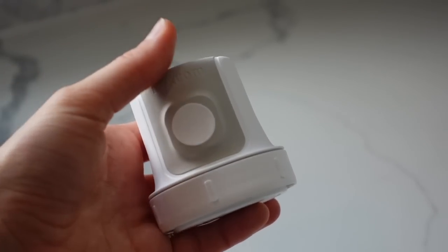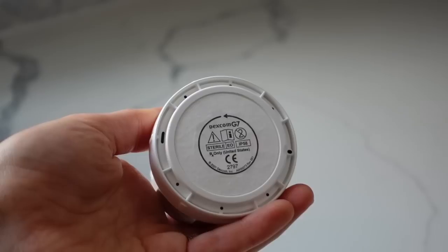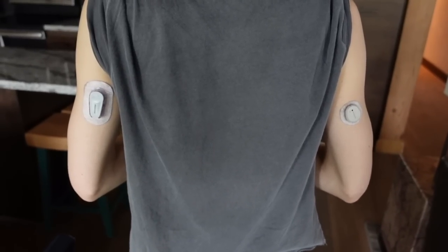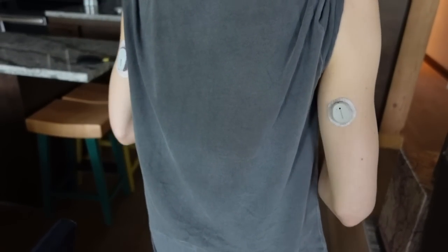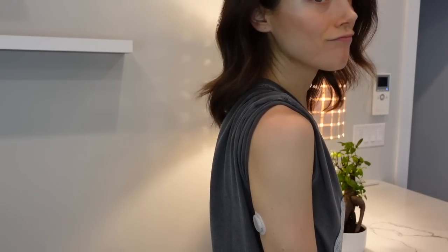When you come to insert the device, you're going to see that the device is now an all-in-one system. This is Dexcom's first all-in-one sensor system, and it's certainly a difference between the G6 and G7. The G6 had a separate transmitter that had to be changed approximately every three months — with the G7, that is no more. The G7 is 60% smaller than the G6, a lot more circular, and a whole lot thinner, so for those with tight-fitting clothing, you're going to be able to hide it just fine.